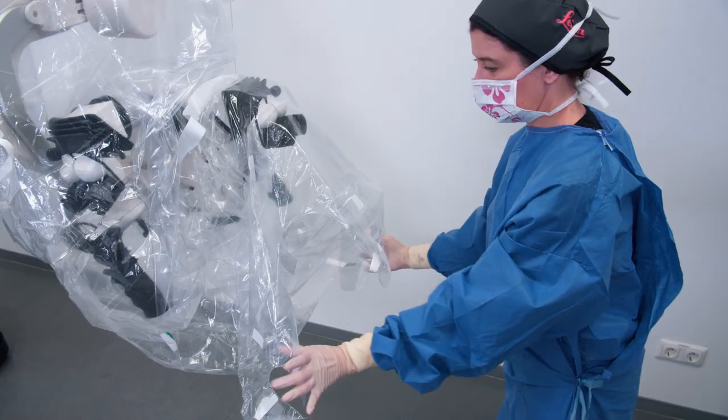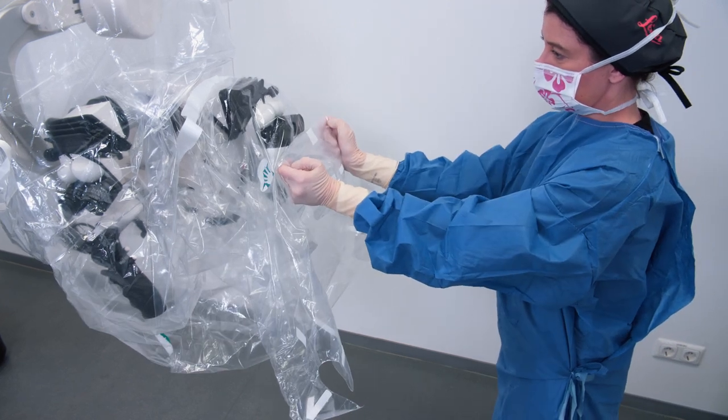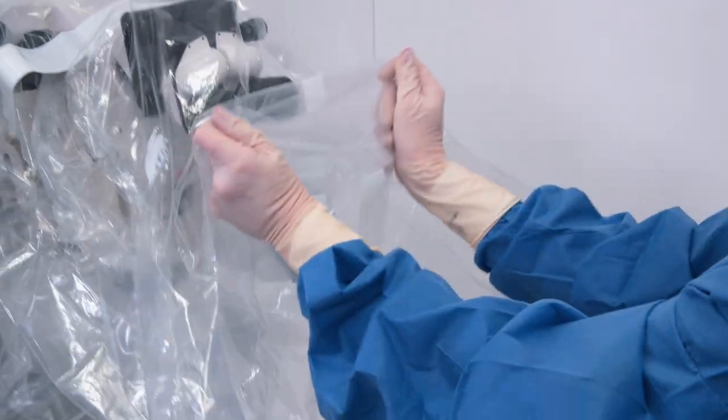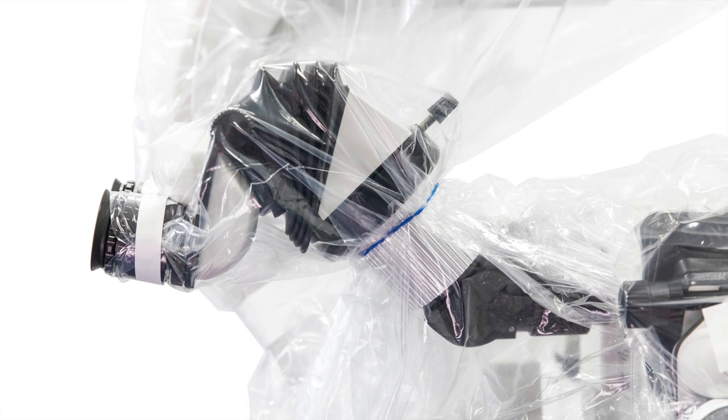It's now time to drape the eyepieces. The drape has several eyepiece covers. Choose the middle one from the three facing you to drape the surgeon's eyepiece. Then use the other ones depending on the number of eyepieces to be draped.